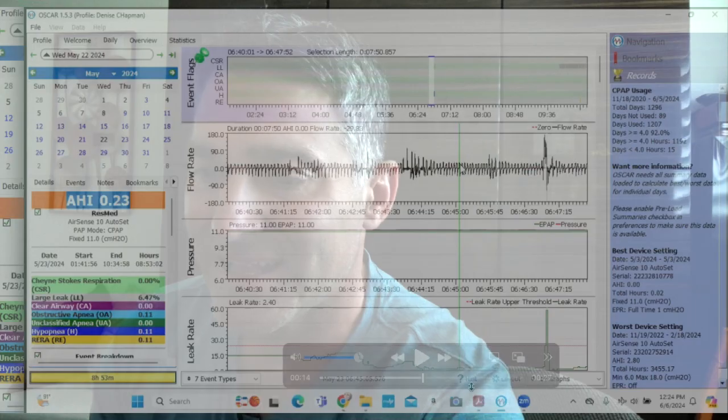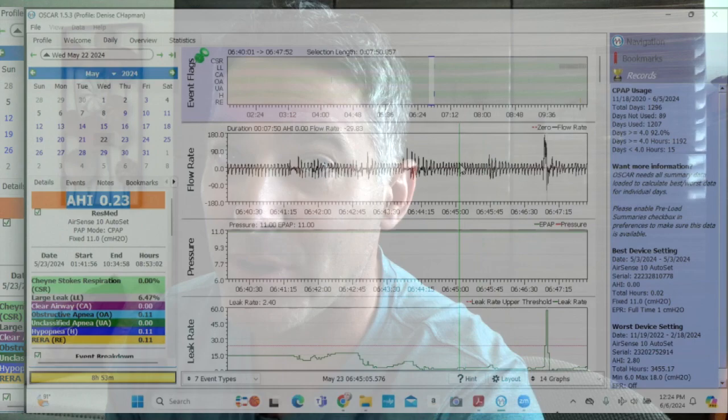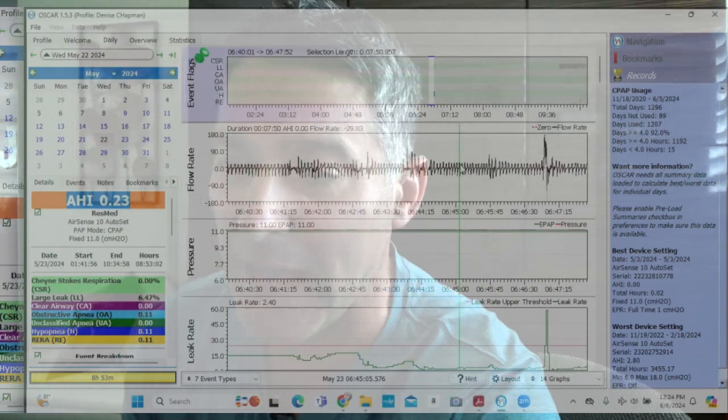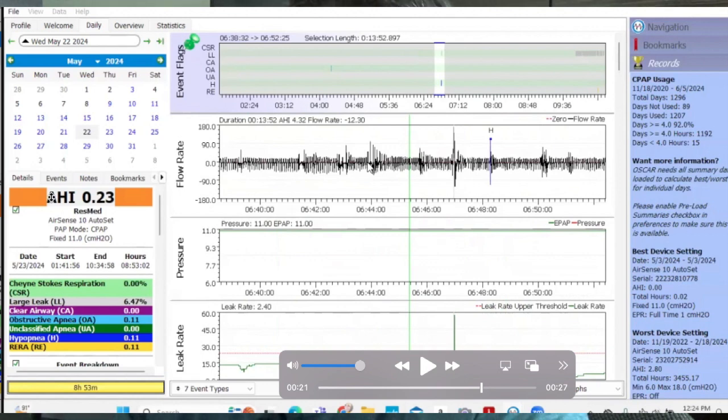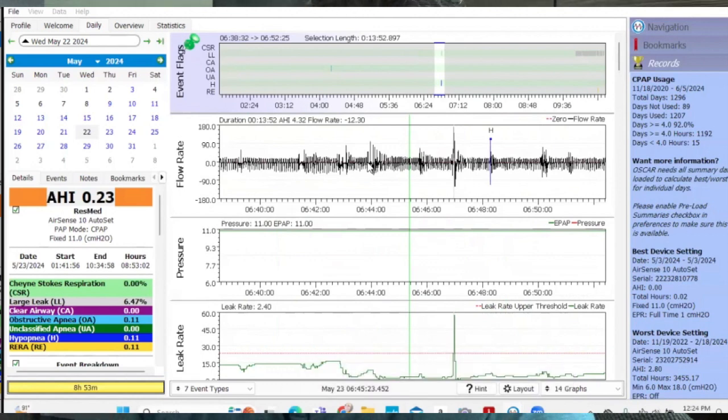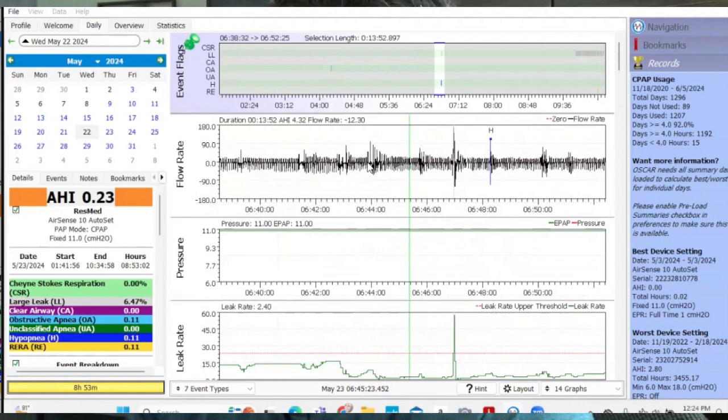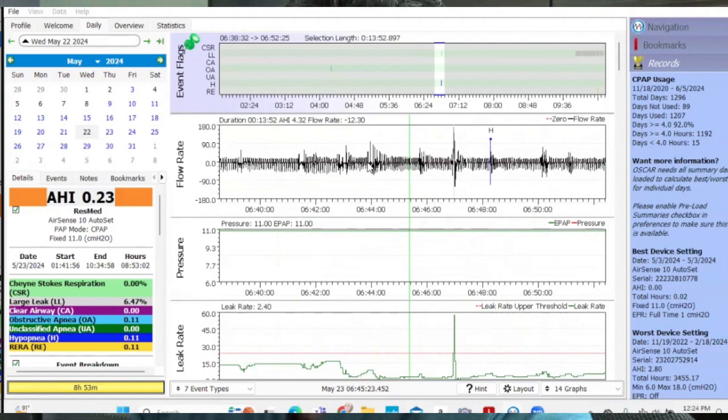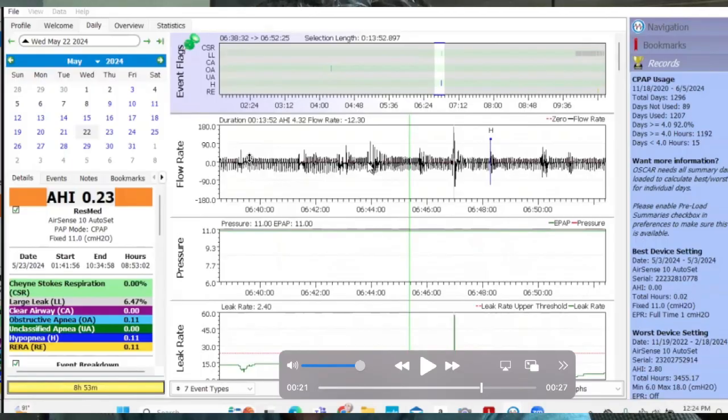And so let me show you exactly what I'm talking about using some real data from a real patient who said, but Jason, my AHI looks good on the machine. And I said to myself, let's go ahead and sync the audio. So over here, what I was trying to explain to him is they have an AHI of 0.23. Now, if that were totally accurate, if that were actually representing the number of awakenings this person is having per night, they would feel probably pretty great, but it's not. This has nothing to do with the apnea hypopnea index. This has to do with fictitious numbers pulled out of the butthole of the machine. Let me show you exactly what I'm talking about.